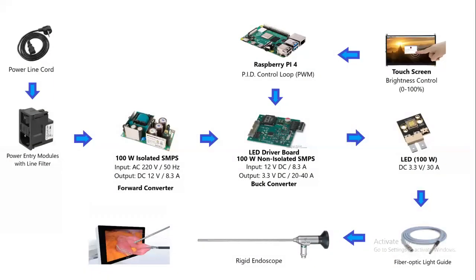and it will go through the fiber optic. And of course, here's the Raspberry Pi and the touch screen to control the brightness, the setting of the LED drive board.